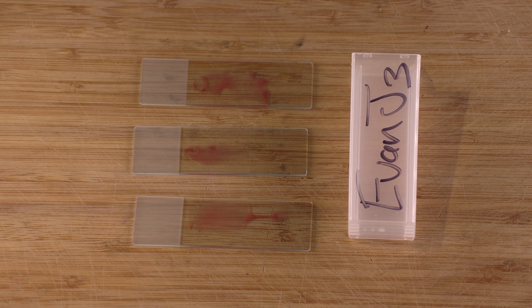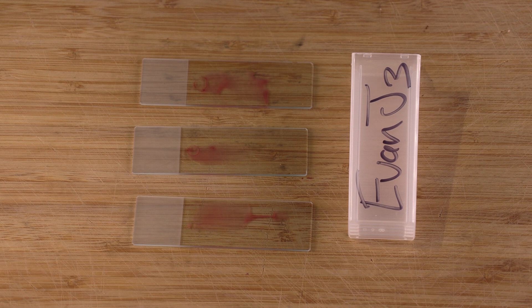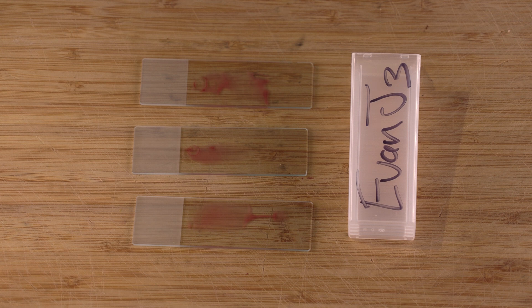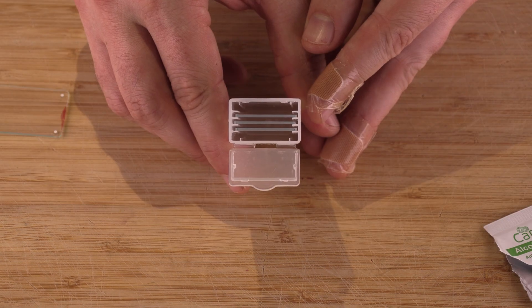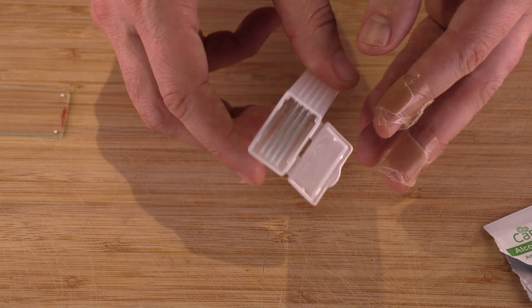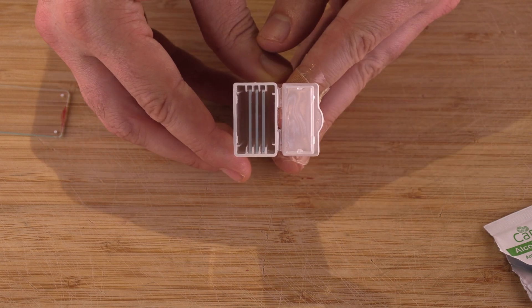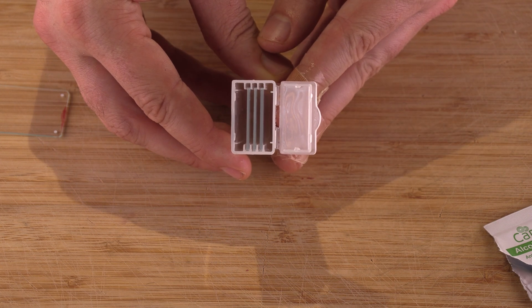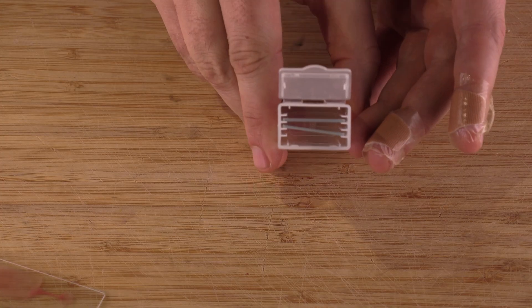After your slides have dried you're going to want to store them for safe shipping back to the lab. You want to store these carefully so that there will be no damage and the parasitologist will be able to analyze your pristine samples.